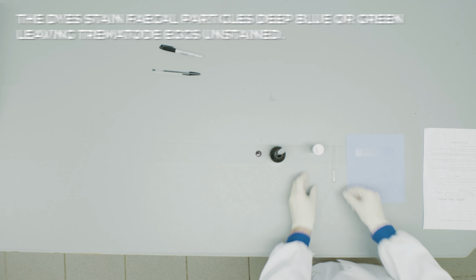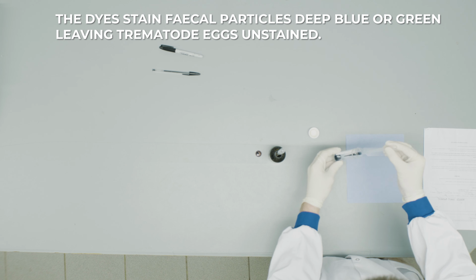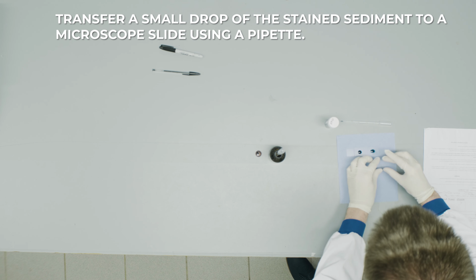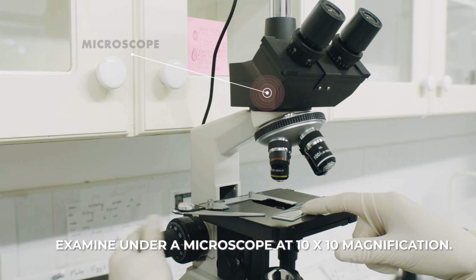The dyes stain fecal particles deep blue or green, leaving trematode eggs unstained. Transfer a small drop of the stained sediment to a microscope slide using a pipette. Cover the droplet with a cover slip. Examine under a microscope at 10 by 10 magnification.